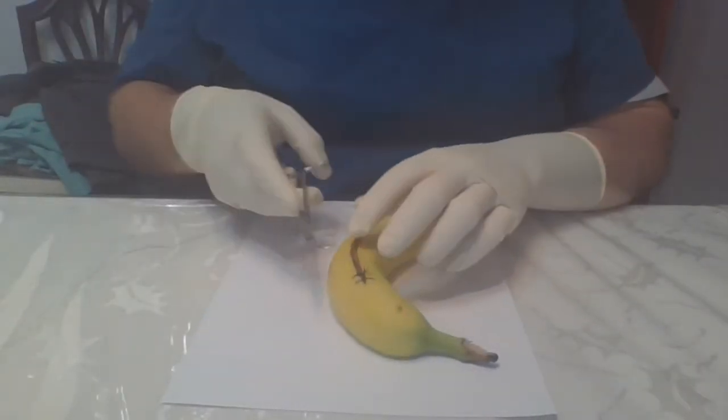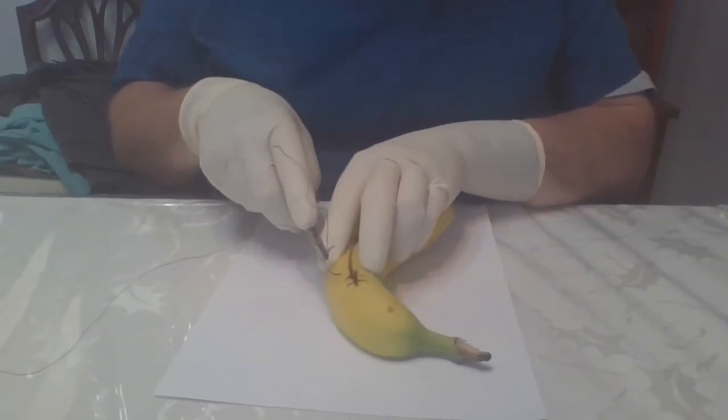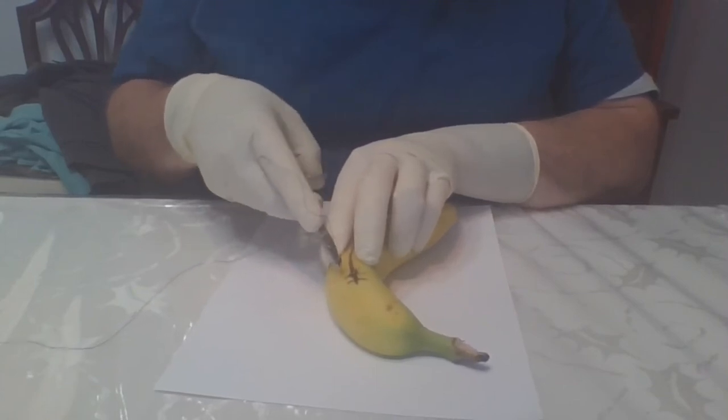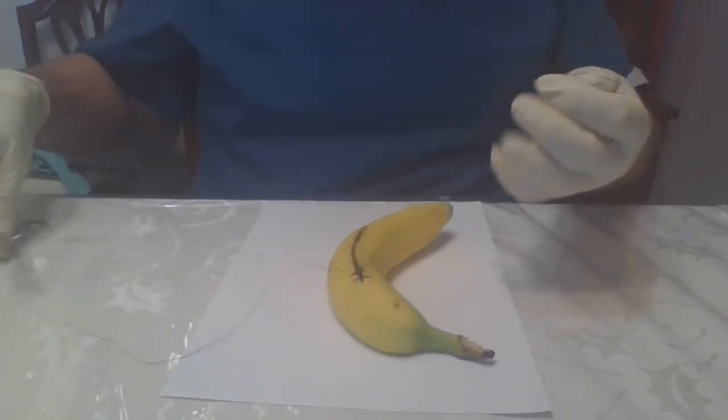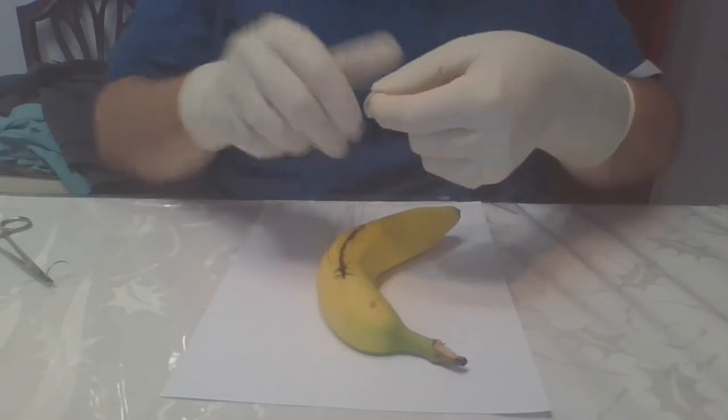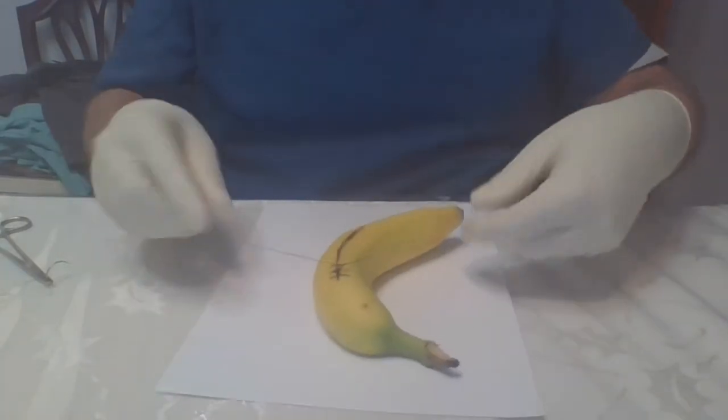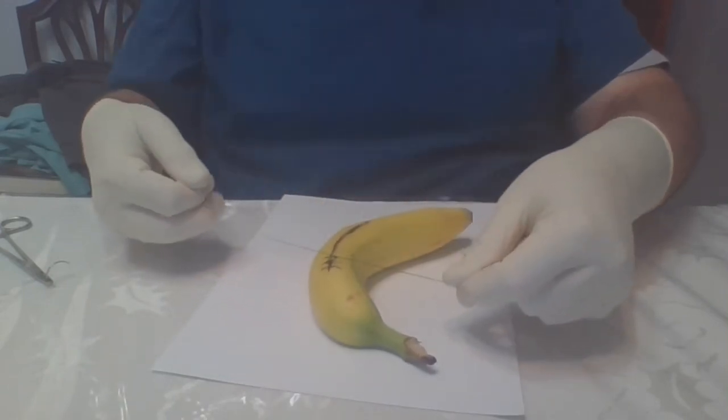All right, let's try one more time here. See if we can get a little better. I think I've got some issues here. Let's see if we can get a little bit better. Let's try another suture in this time. All right. Of course, this is about how to load the needles, not about how to suture a banana.